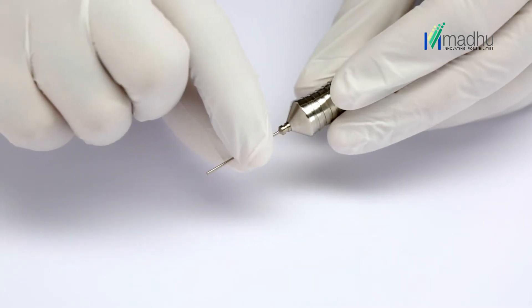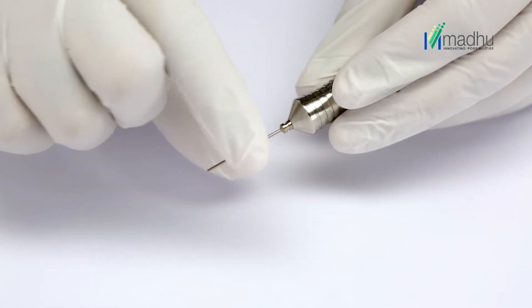Move the tip base slowly into the cavity. The tip is pulled into the cavity by the magnetic force and attaches itself to the handle.